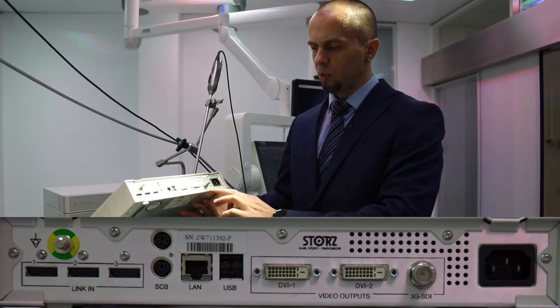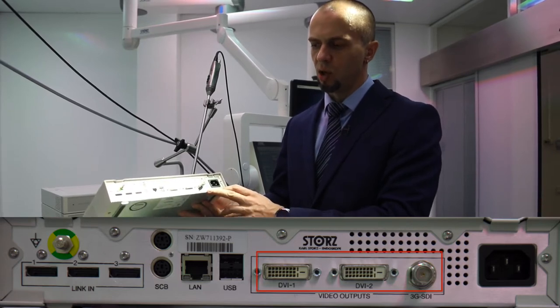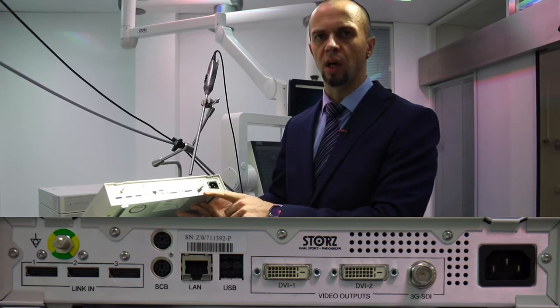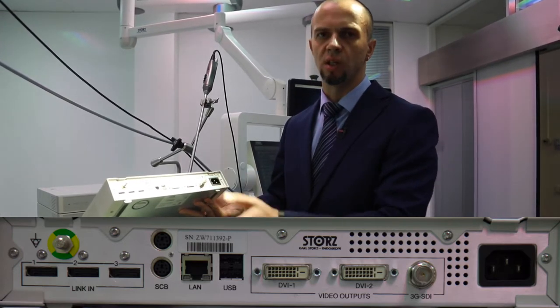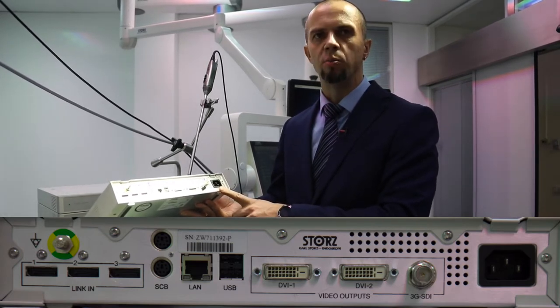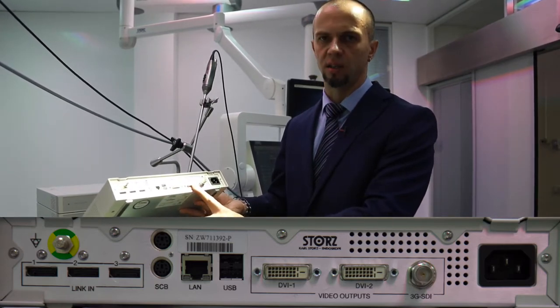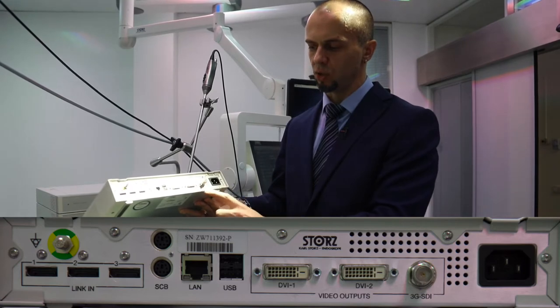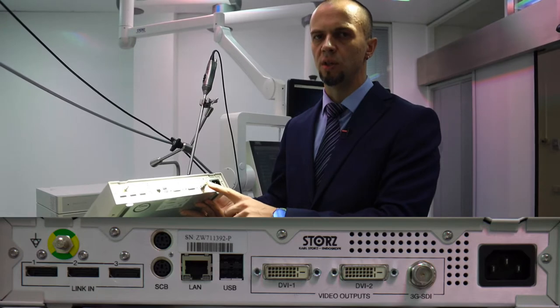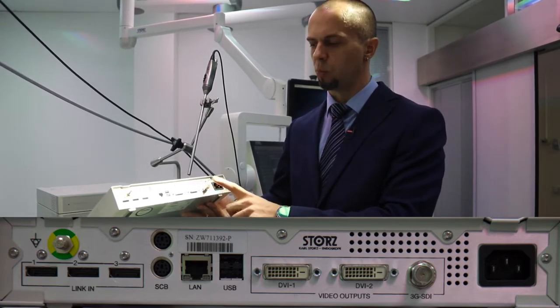Далее идёт панель с нашими видеовыходами. Обратите внимание: больше нет аналоговых выходов. Это очень важный момент. Систему к аналоговым захватывающим устройствам — видеомагнитофону, DVD-рекордеру, через S-Video, RGB — вы подключить не сможете. У нас есть два равнозначных DVI-выхода и один 3G-SDI-выход. 3G означает, что через этот SDI-выход можно передать Full HD видеосигнал — Full HD поддерживается полностью.